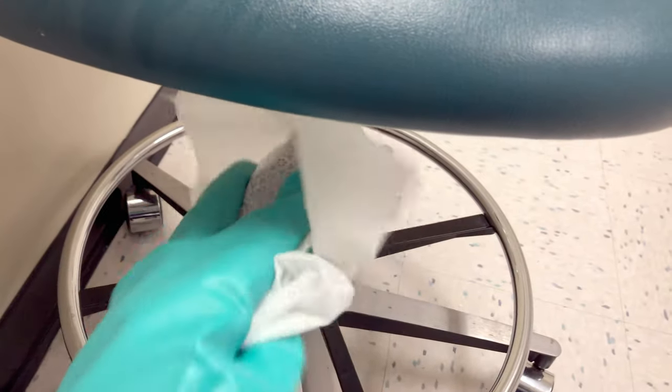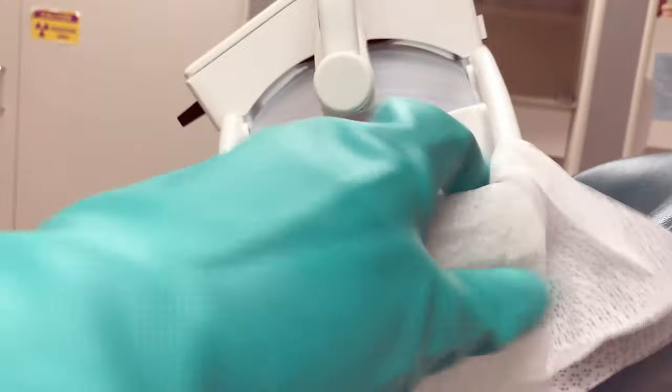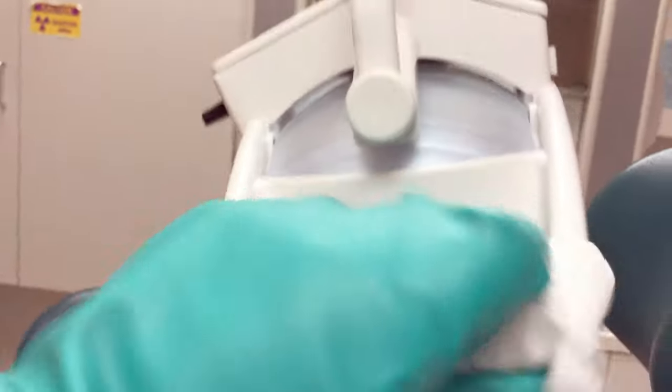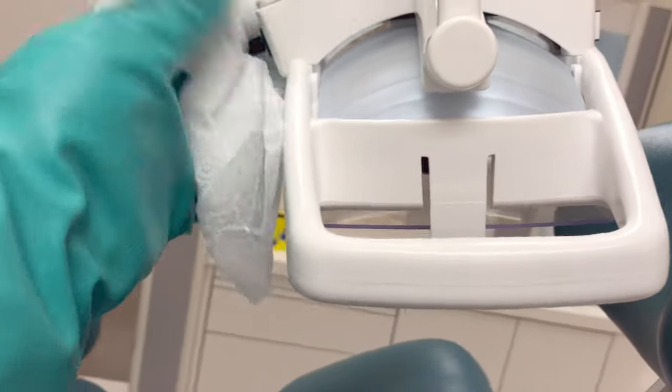When you get to the assistant stool and the operator stool, don't forget the paddles on the side — a lot of times we're touching these throughout a procedure to fine-tune our positioning. For operatory lights, disinfect the handles and the switches, even if they had a barrier. If this is the end of the day, we disinfect everything.